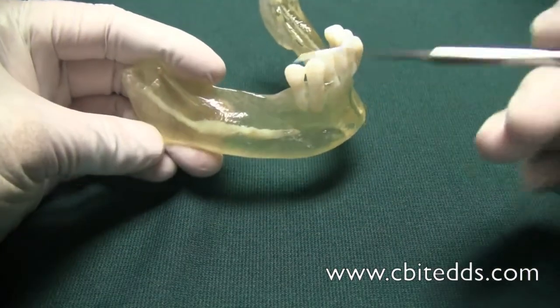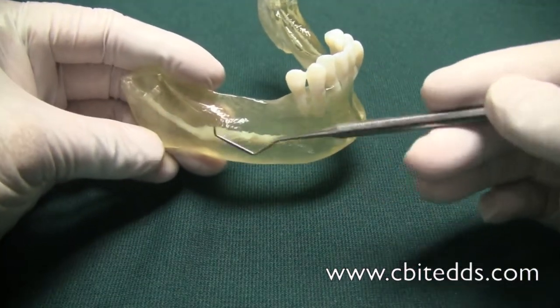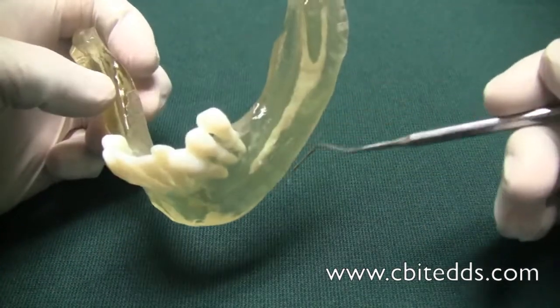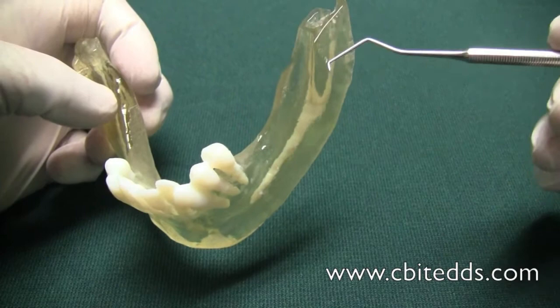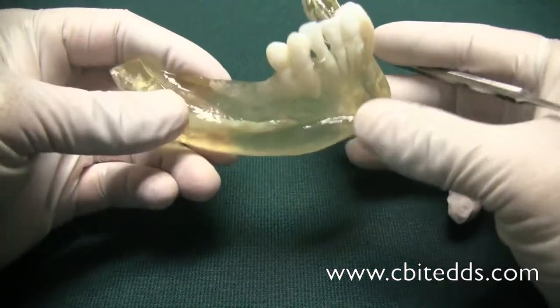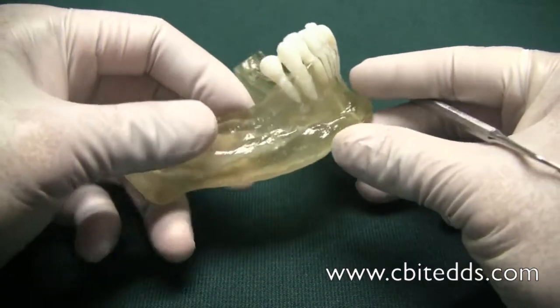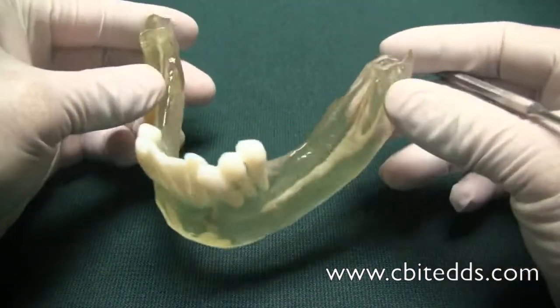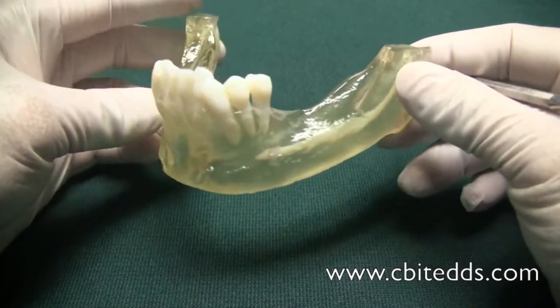The purpose here is so you can easily view the nerve canal on both sides of the mandible right here. In this case, you can see this patient has very little bone here, so it will not be easy to put an implant in there.